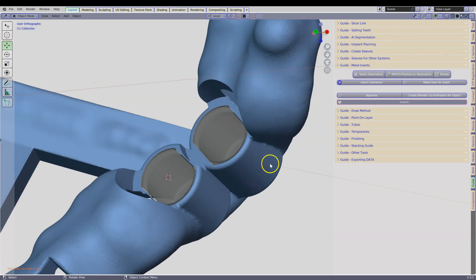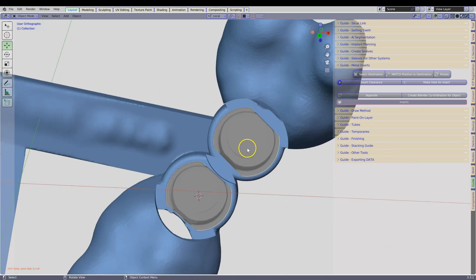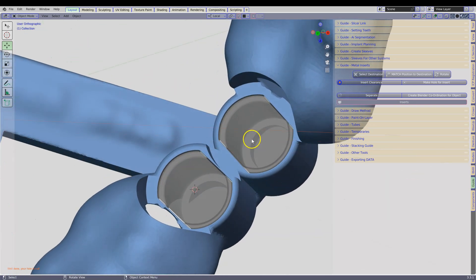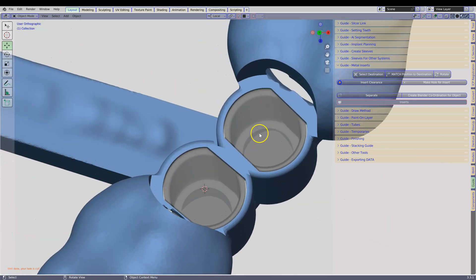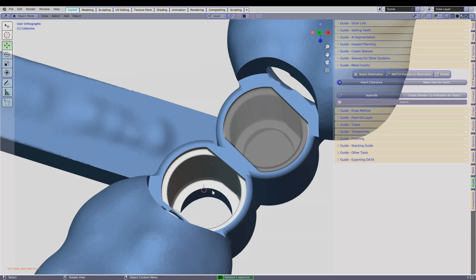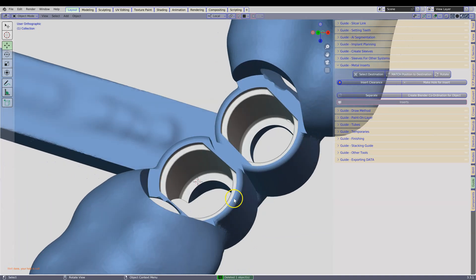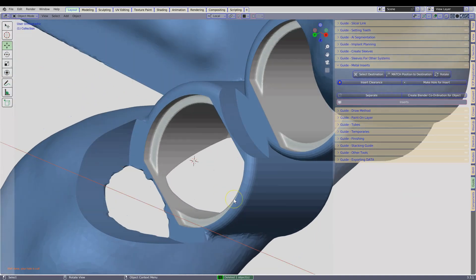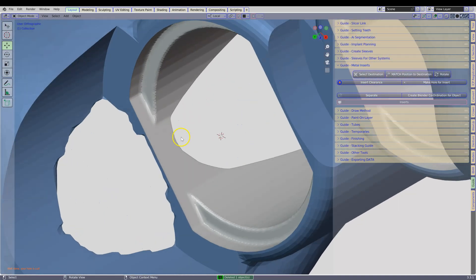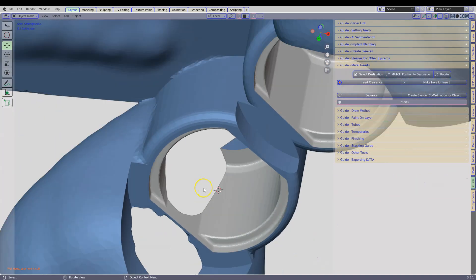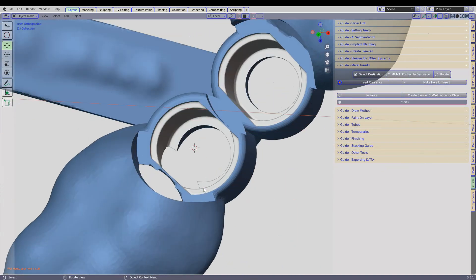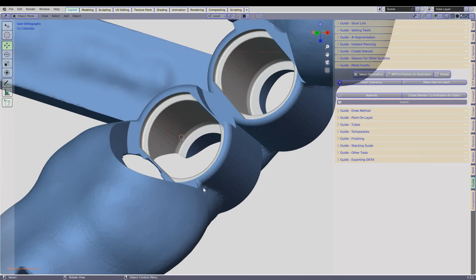This is what your guide looks like now. Once you order these components they should fit into the cavities. Over here we are very thin, but this cannot be avoided at this stage.